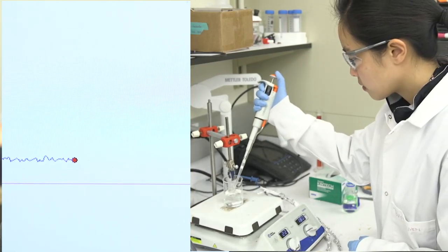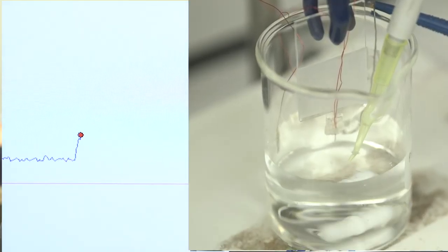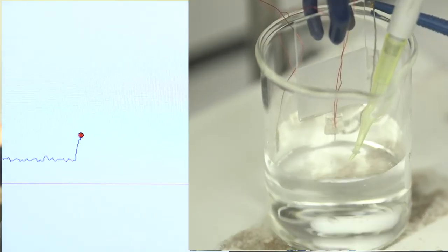We create a calibration curve to understand how the sensor behaves, and we expect the sensors to behave similarly in the body when we implant them into the spinal cord.